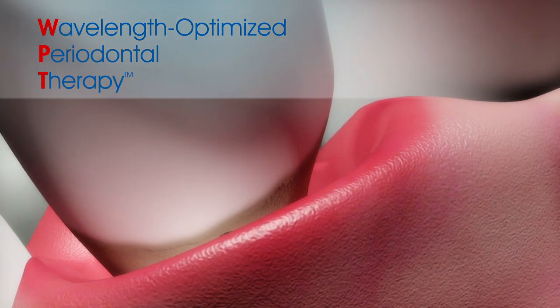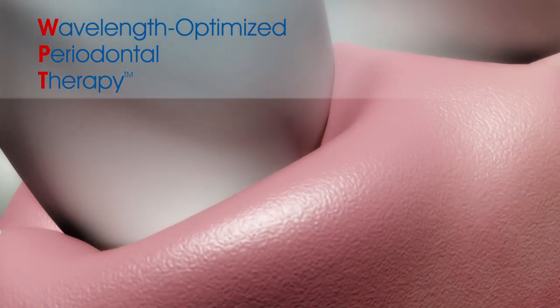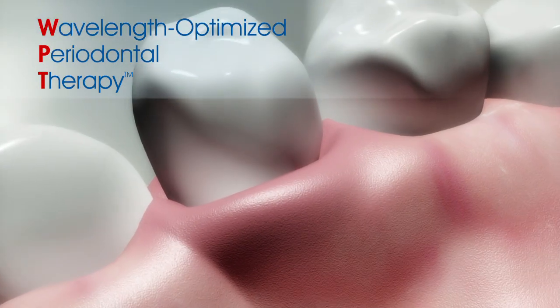Wavelength-optimized periodontal therapy, a breakthrough in minimally invasive periodontal disease treatment that can restore your patient's periodontal health.